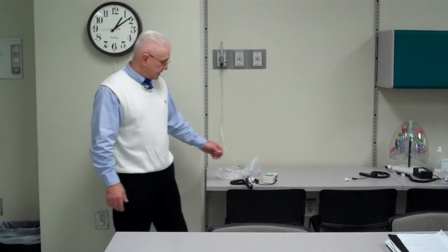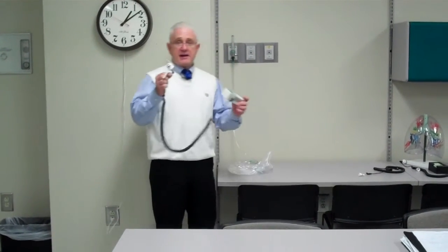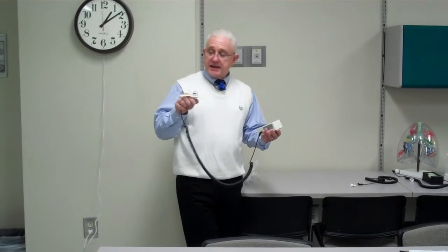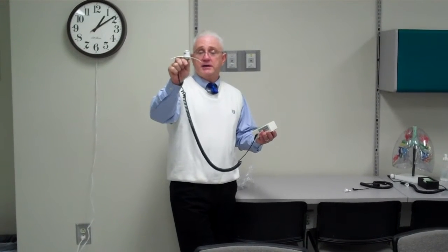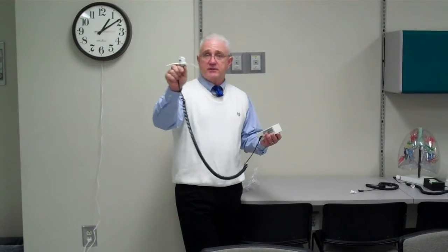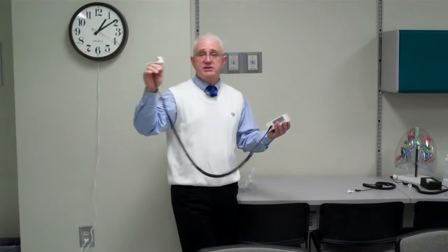Hi, this is Alan, and what I want to do today is to show you how to calibrate an O2 analyzer. This is the Mini Ox 1, and it uses the galvanic fuel cell, and there's a Clark electrode. It actually does not require any kind of electricity, or outside electrical current, for it to read the O2 in the room or in a gas source. There are two poles, and there's an electron transfer that occurs due to a chemical reaction with the amount of oxygen inside the room.